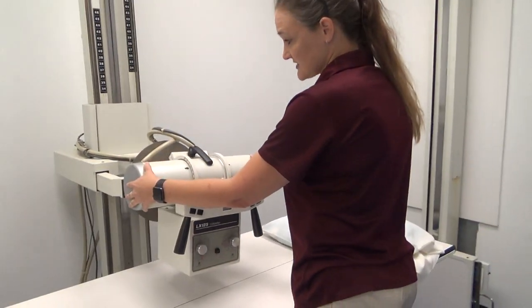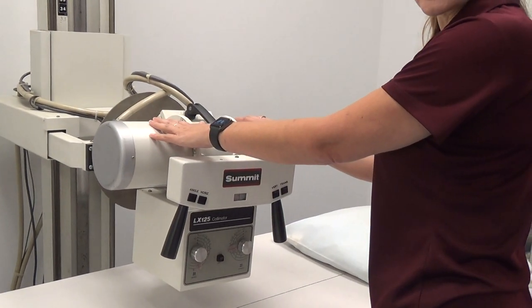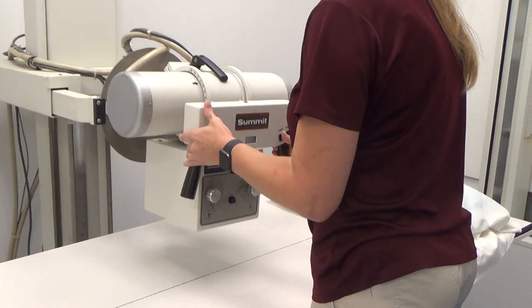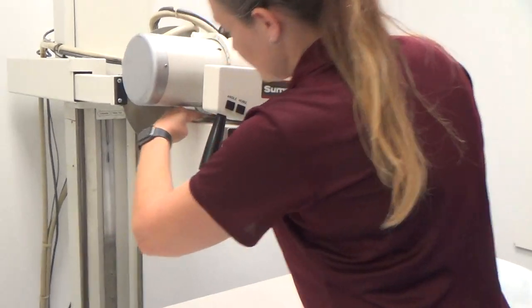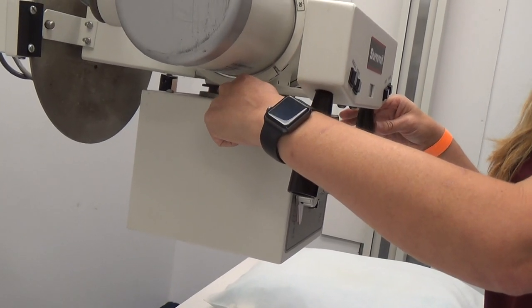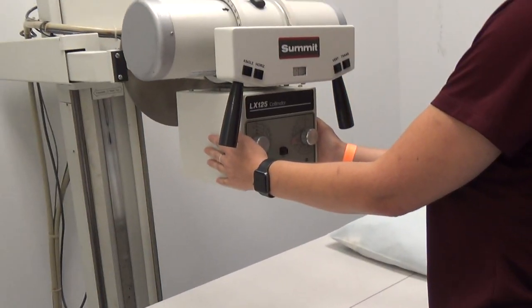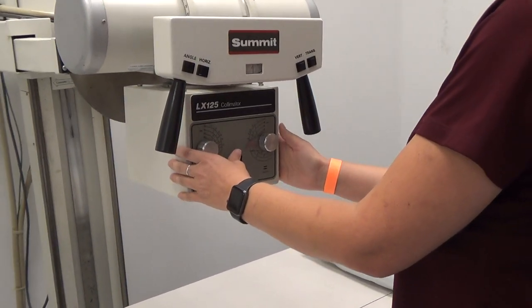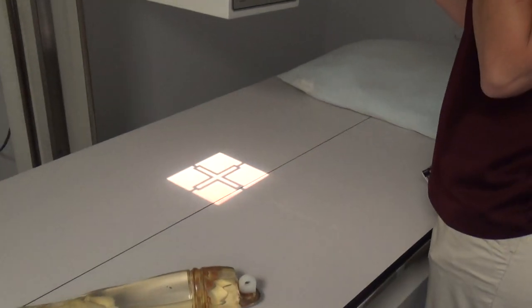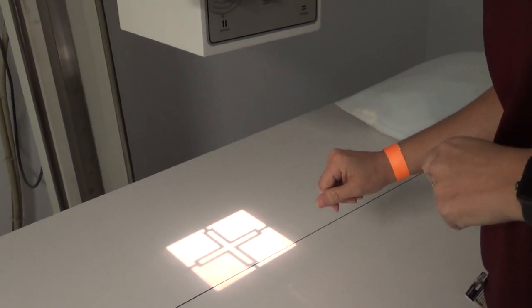So this is your tube housing. Inside of this you're going to have your glass envelope — this is where you actually have the production of your x-rays. Underneath the tube housing in this area here, you have your tube port, which is where the x-rays actually come out of the tube housing. This box here is your collimator. The collimator is what allows you to control the size of your radiation field. We'll shut the light off really quick so you can see that light field right there with the cross arrows in it, showing you where the radiation is actually going to fall.